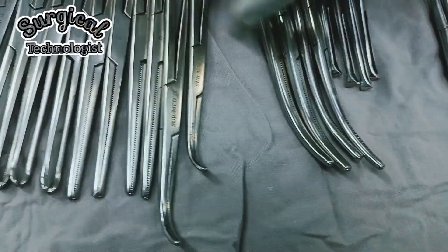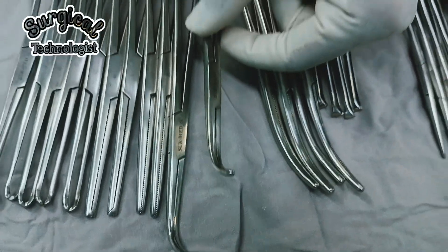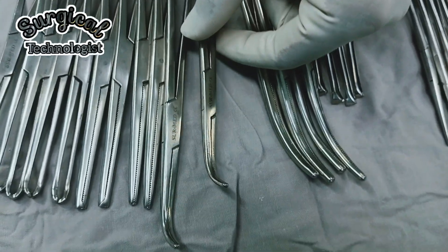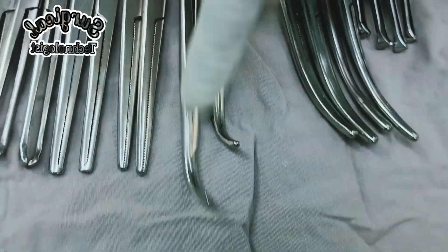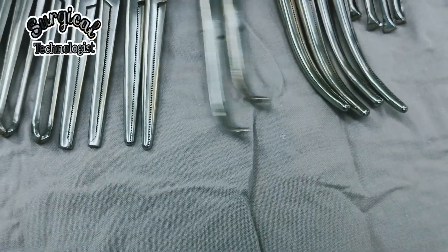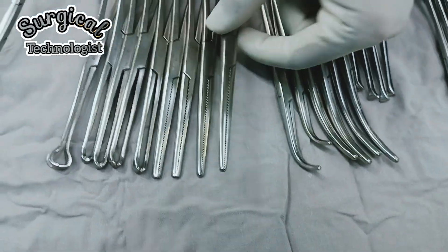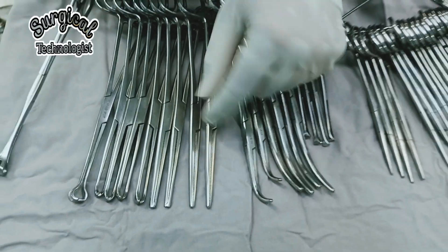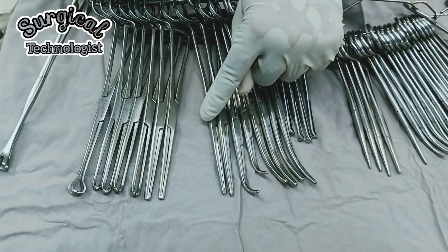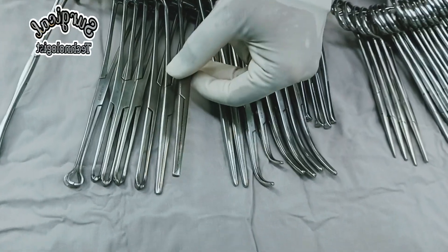This is right angle forceps, also known as Lahey forceps, used for manipulating vessels or deep tissue structure. This is a long heavy artery, also known as Spencer Wells artery forceps.